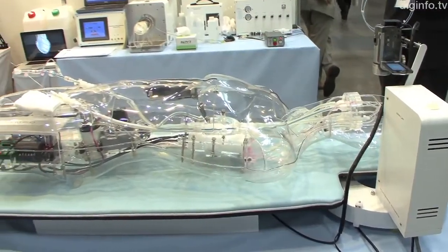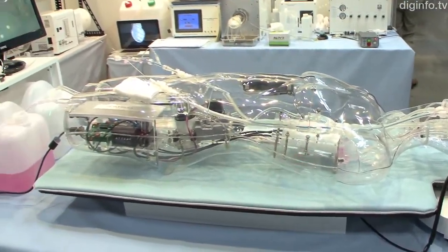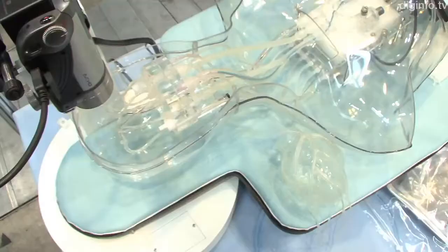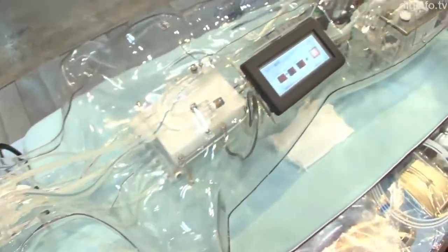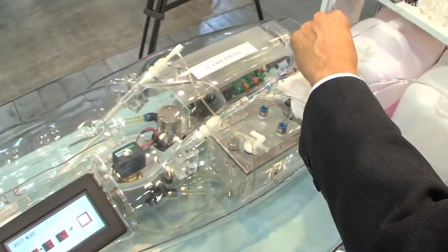The CYBRAM-001 Cybernetic Brain Artery Model simulates the functioning of the cerebral blood vessels, so doctors can develop the skills required to perform actual operations on the brain.